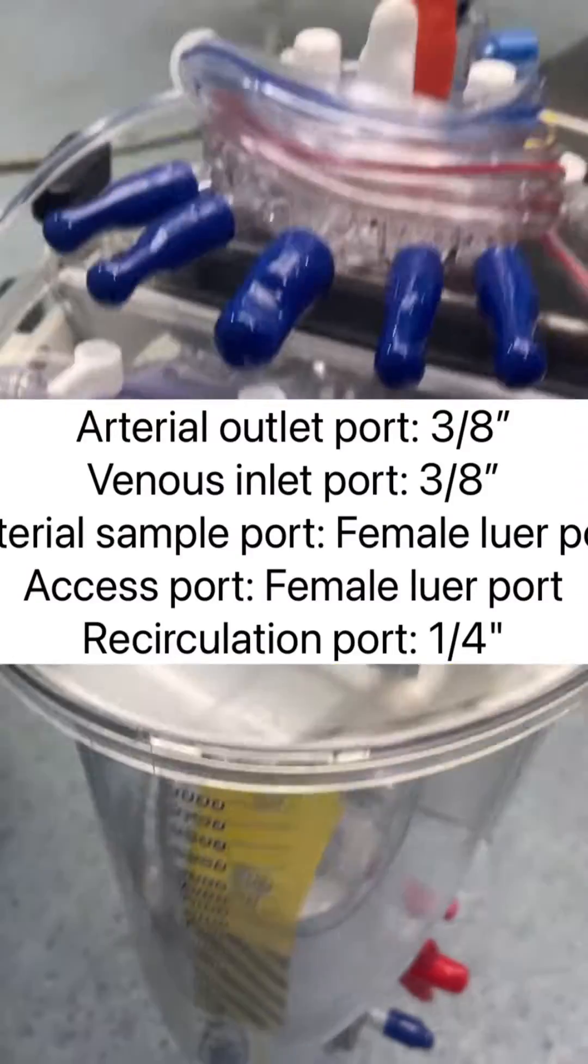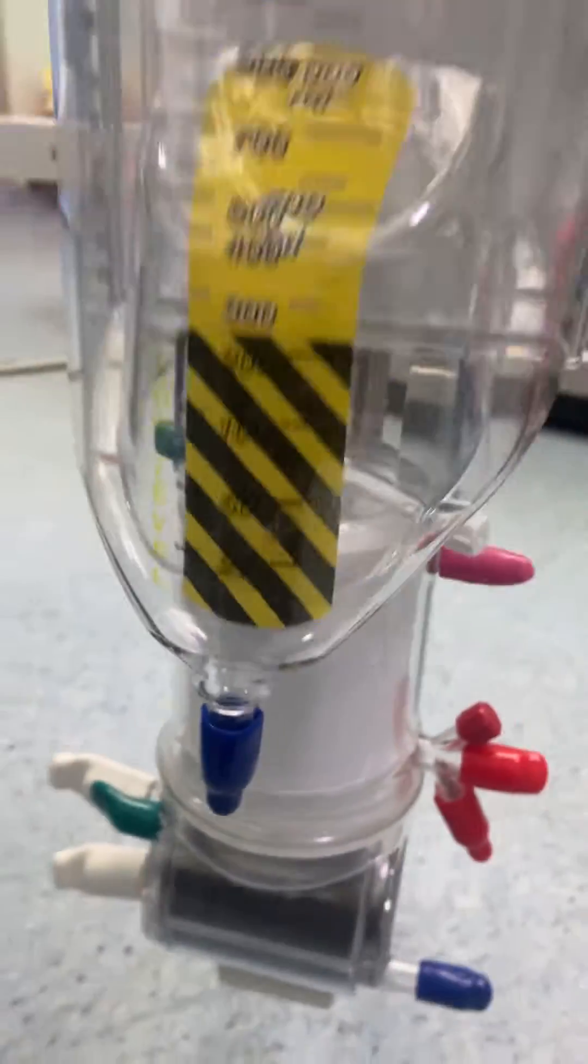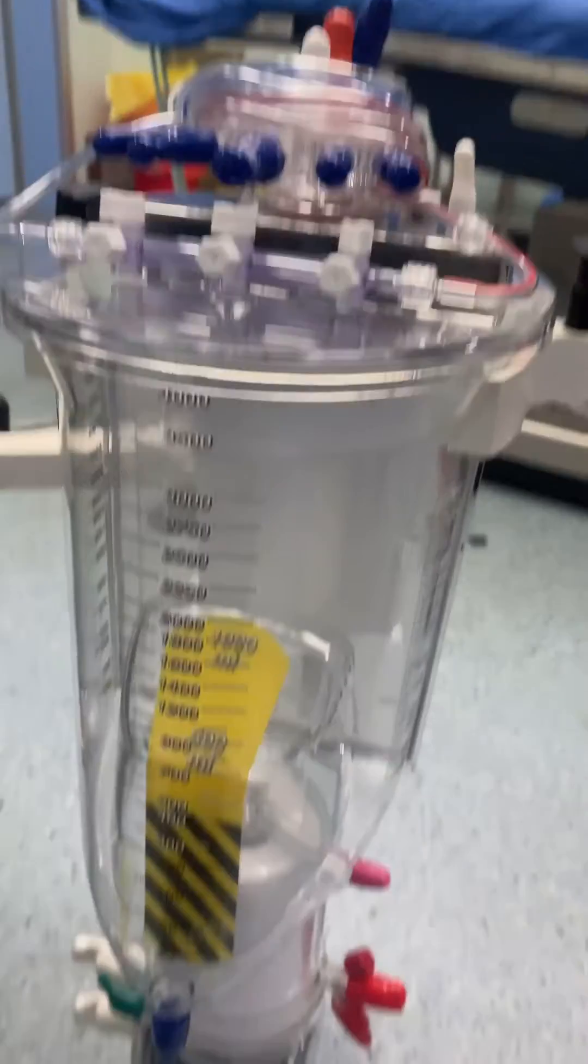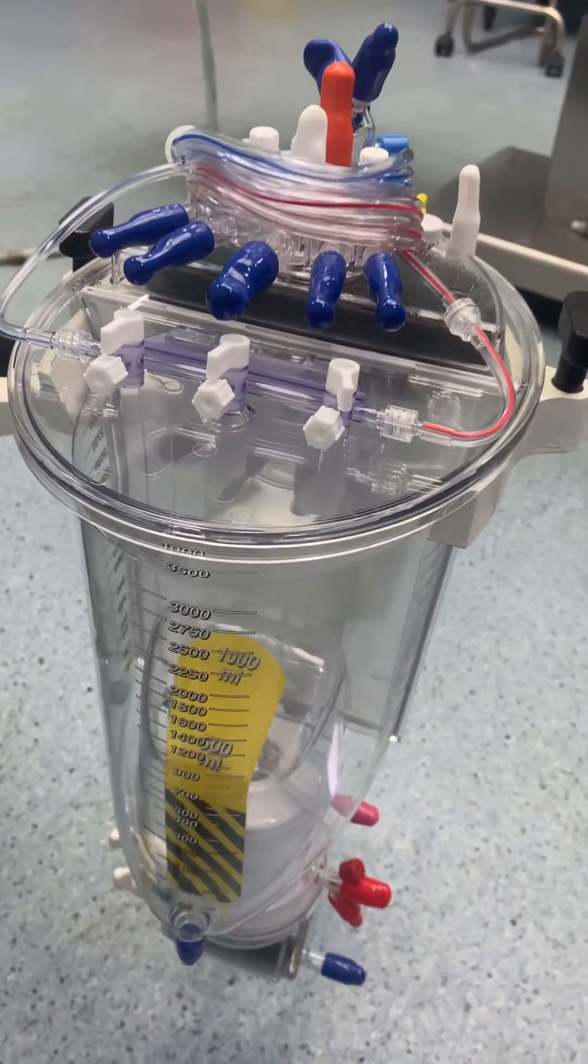Arterial outlet port: 3/8 inch. Venous inlet port: 3/8 inch. Arterial sample port: female luer port. Access port: female luer port.